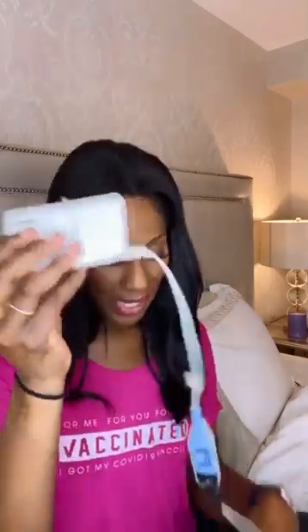So the first thing we do — these are the instructions — we first need to put in the batteries into the monitor. I'm going to take this off and put the battery in here. And then we're going to put in the other one. All right, we got the battery in. Let's put the back on. There we go. The battery's in.